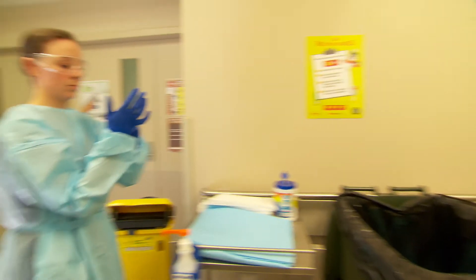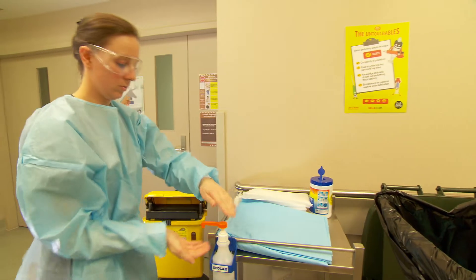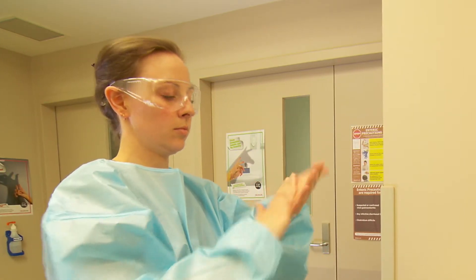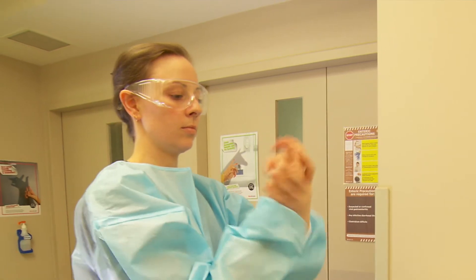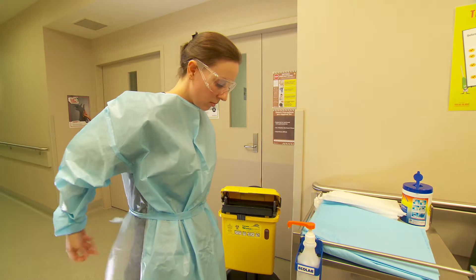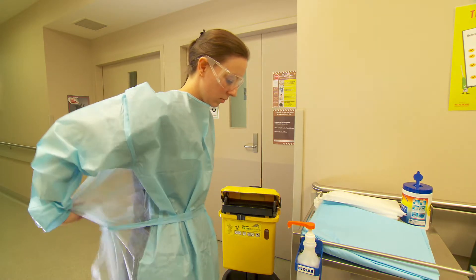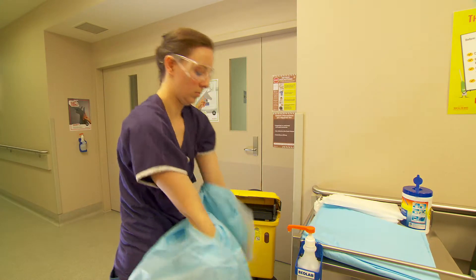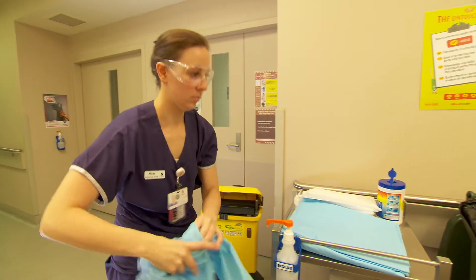Alicia removes her gloves first, as they are likely to be the most contaminated item. Hand hygiene is then performed. Next, Alicia removes her gown. In order to reduce the risk of contaminating herself, it is important that the gown is removed by untying it at the back and then lifting it off at the shoulders. As it is not bloodstained, it can be disposed of in the general waste.